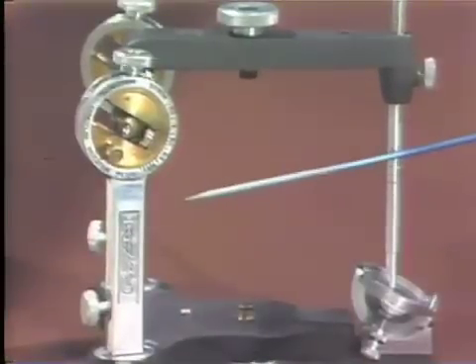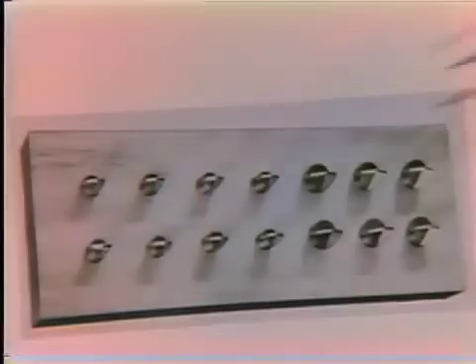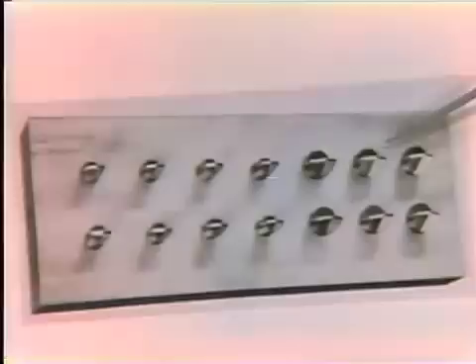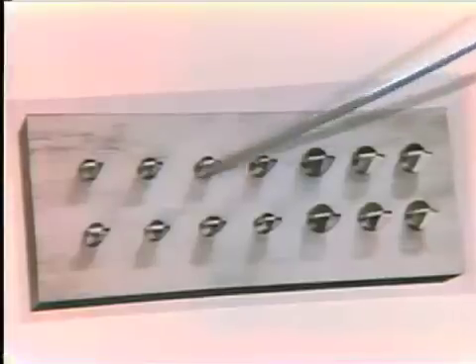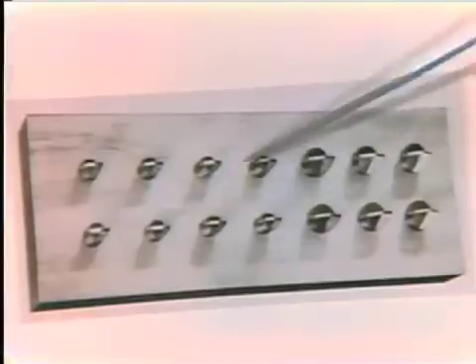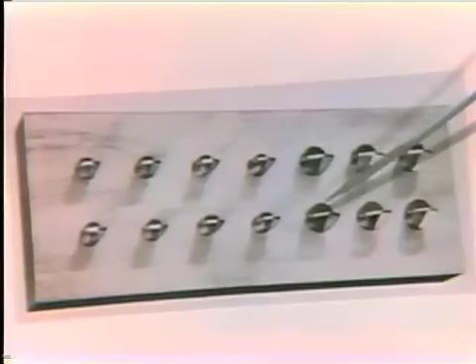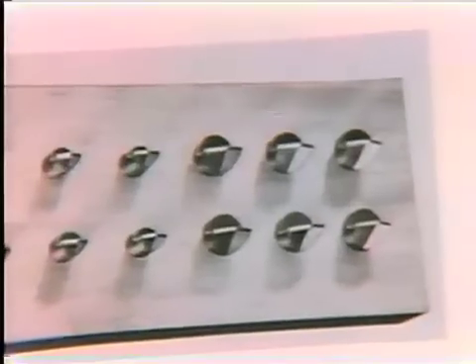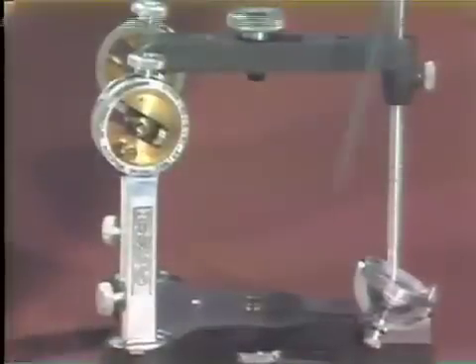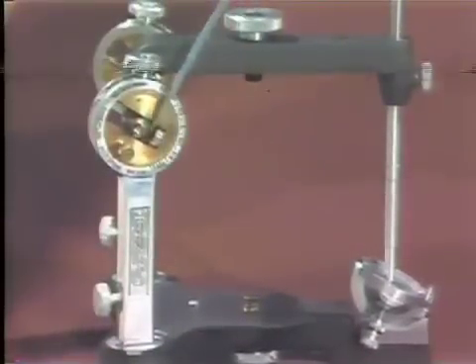The plane of orientation is another of the five factors governing articulation. Measuring from the horizontal condylar guidance down to the mid portion of the 'H' in the manufacturer's name Hanau, this is exactly 33 millimeters from the transverse axis on this articulator. It was at this height, in this mid space, that Dr. Giese located his carving materials to design the occlusal surface of the tooth, placing cutting instruments — large instruments to cut the molar occlusal morphology and smaller ones for the bicuspid morphological surface — at the 33-millimeter height.